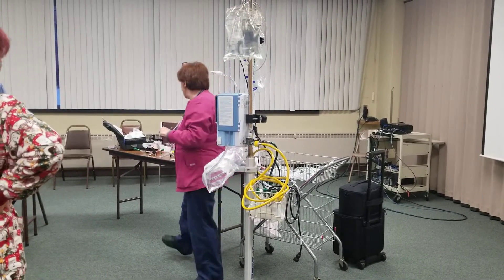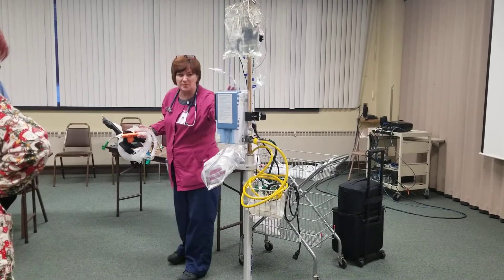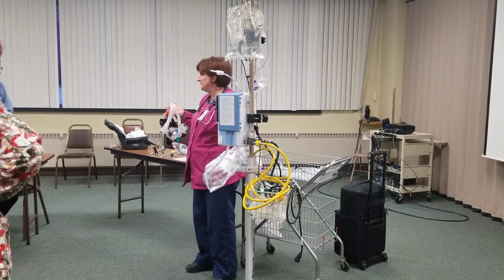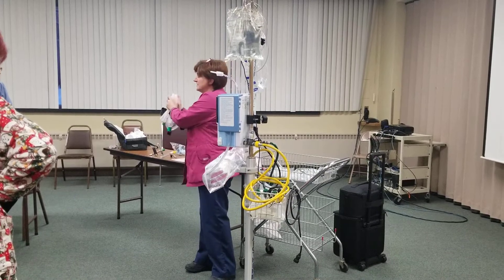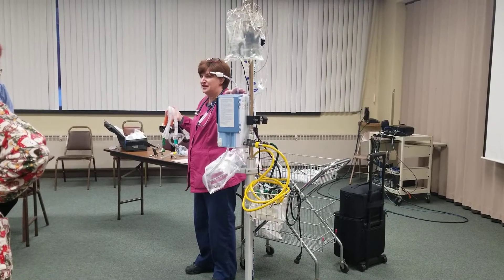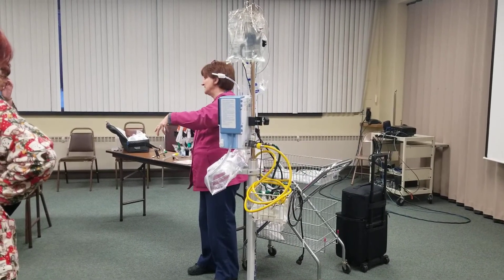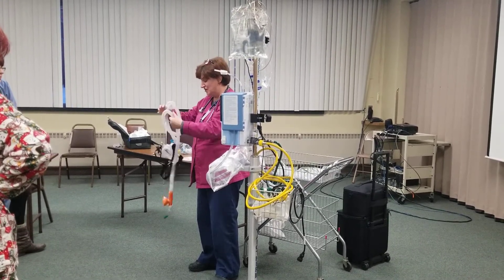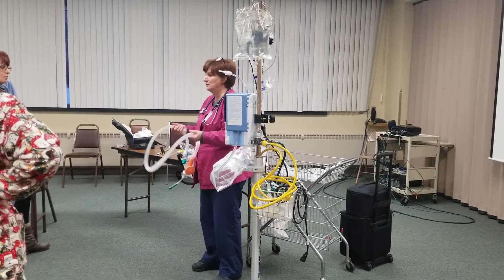So you can pull this, or we can pull this. What would be the difference between these two? This one is only to help oxygenation. This one will most likely help with oxygenation and bring down the carbon dioxide — the waste product. So I don't care if you've got somebody that's crashing and not doing well. I want you to grab one of these.